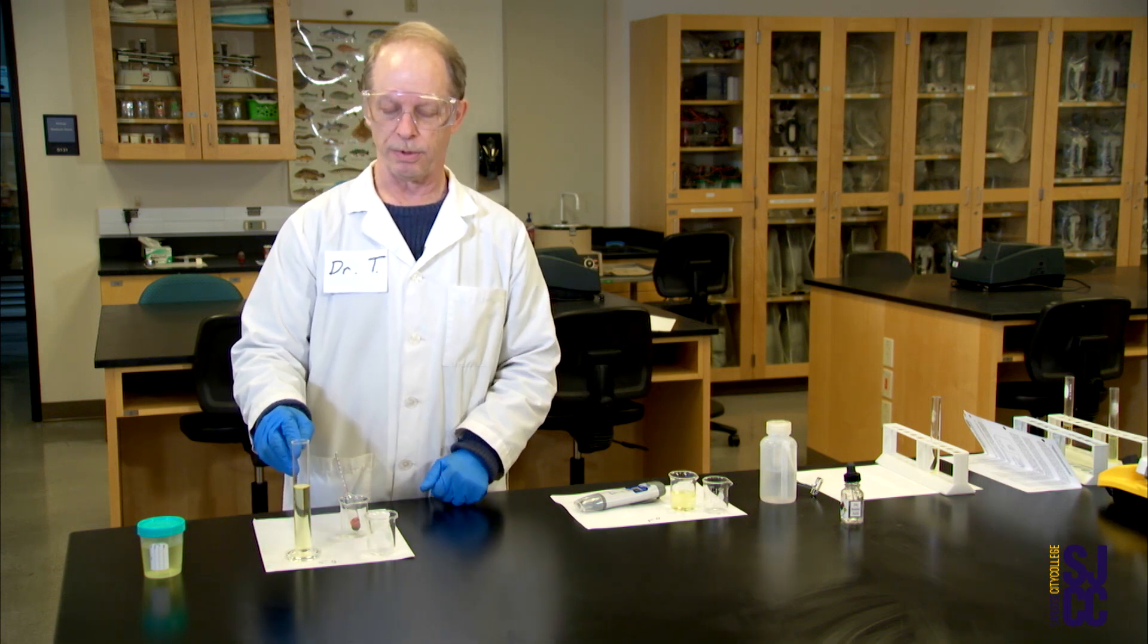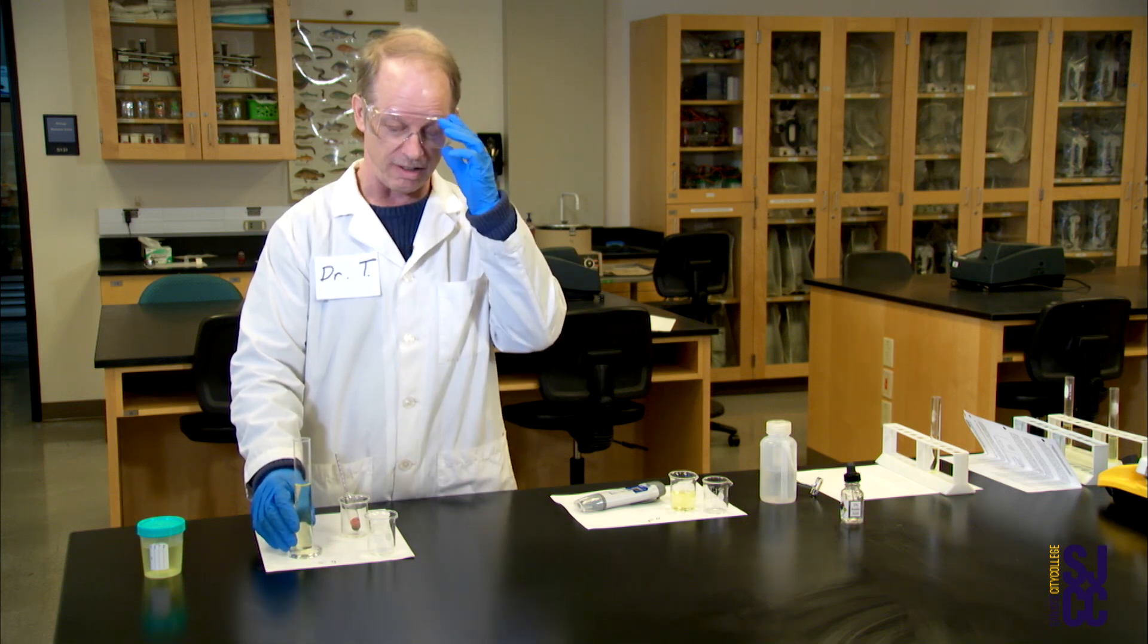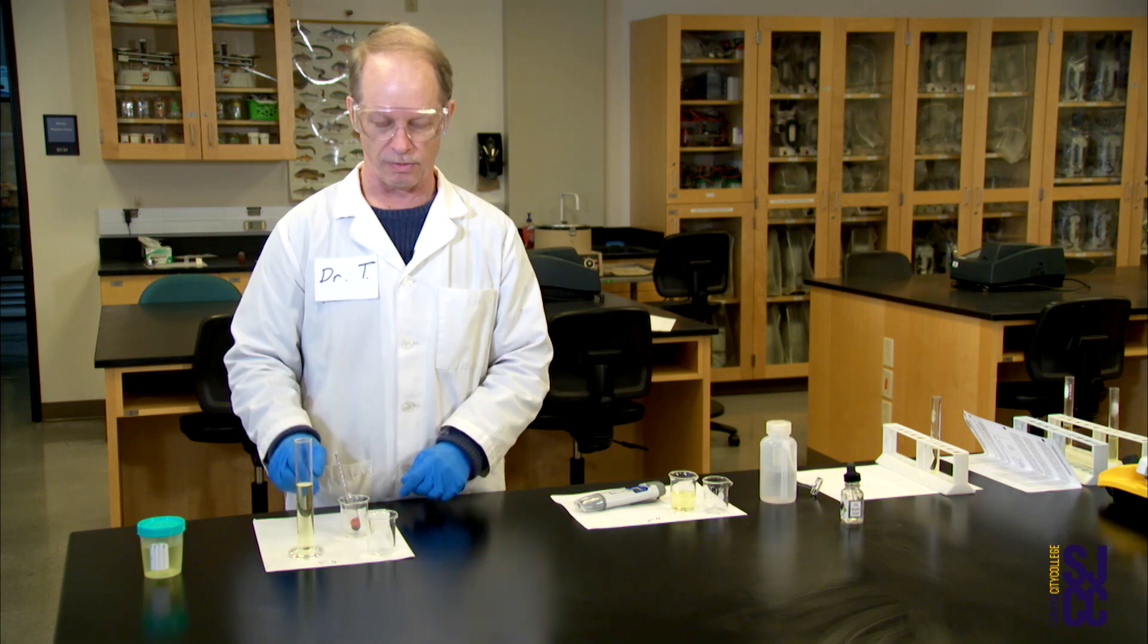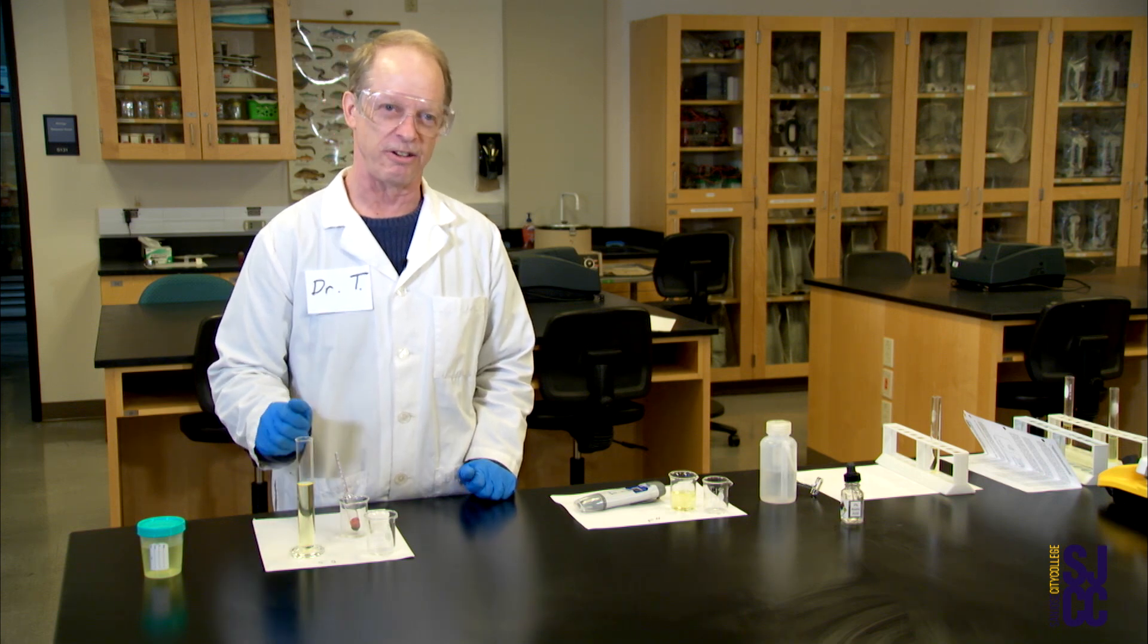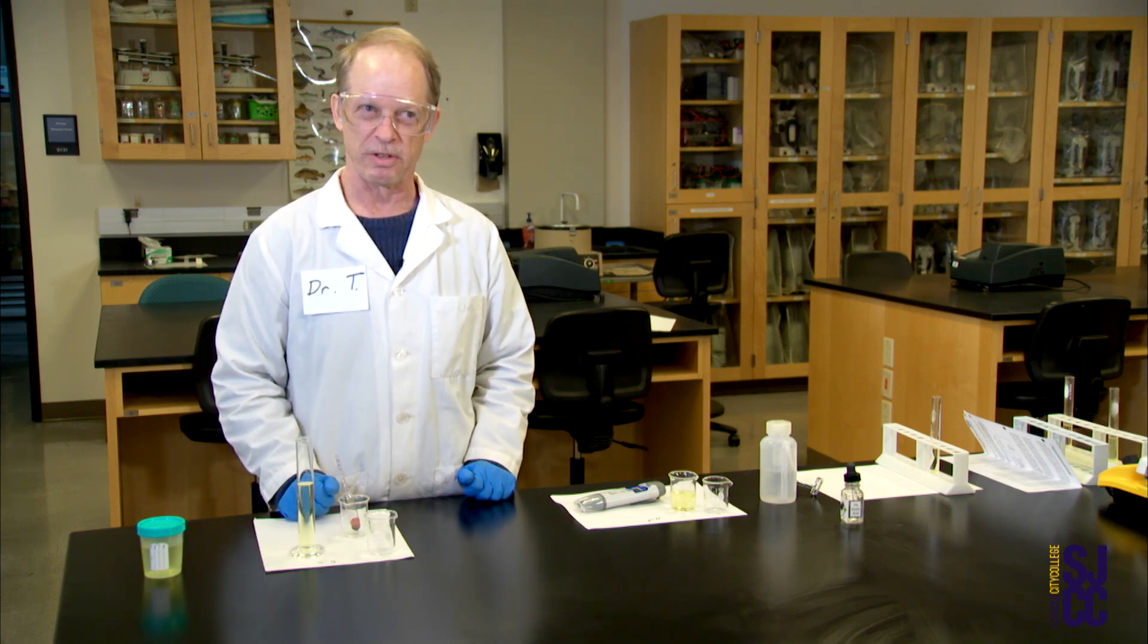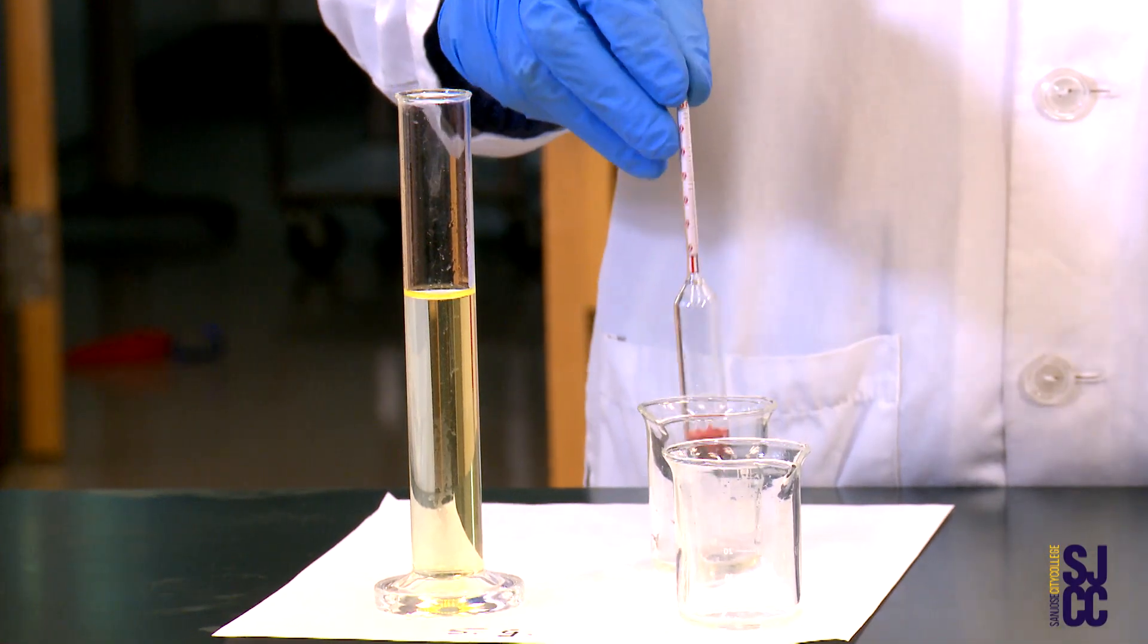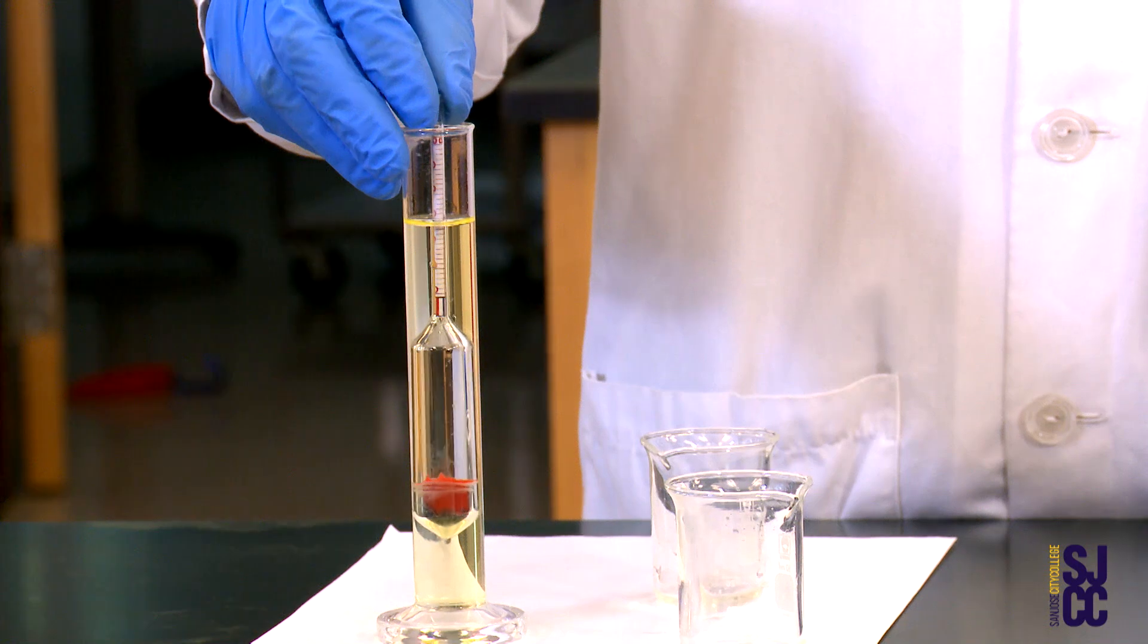You want to be careful when you put the urine in here first because of the principle of Archimedes - you don't want this to overflow the cylinder and spill all over the table. If you don't remember the principle of Archimedes, you have to watch more of the Big Bang Theory because I've seen two episodes where Sheldon Cooper explains it very well. I'm going to put this urinometer into the cylinder.